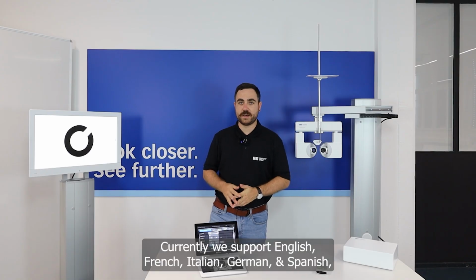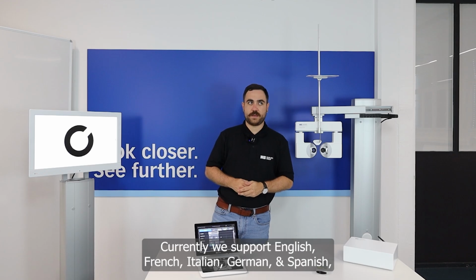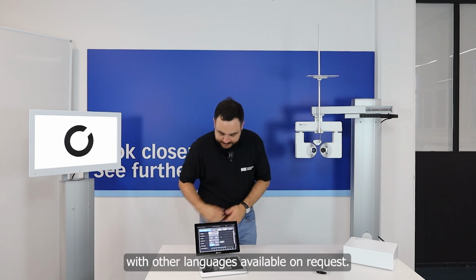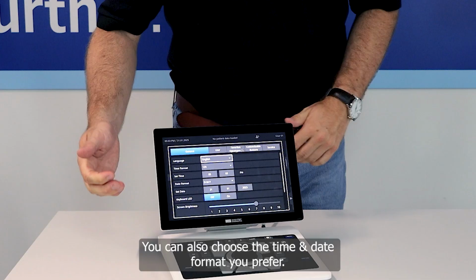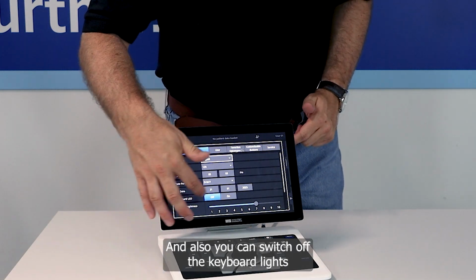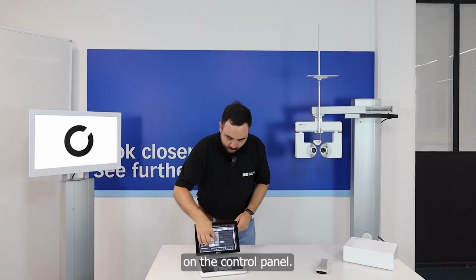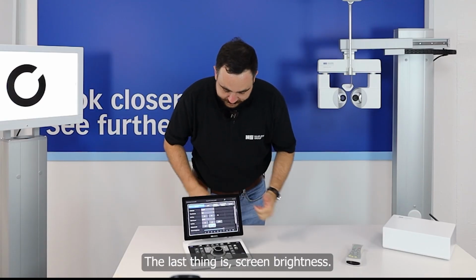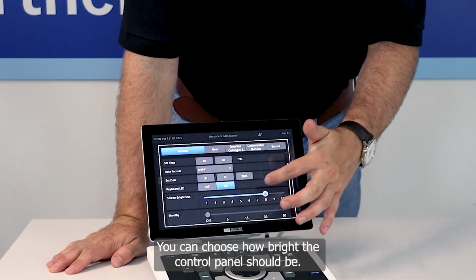Currently we support English, French, Italian, German and Spanish, but further languages are available on request. You can also choose your time and date format, whatever you prefer. You can also switch off the keyboard lights here at the control panel. The last thing is screen brightness, so you can choose how bright the control panel should be.